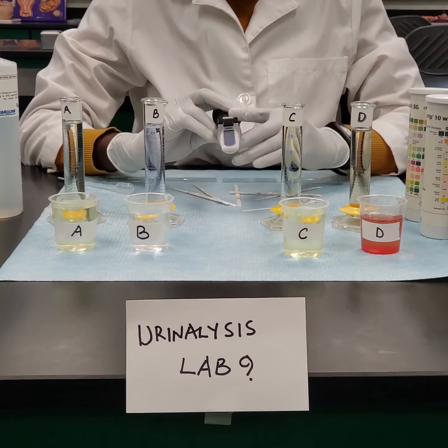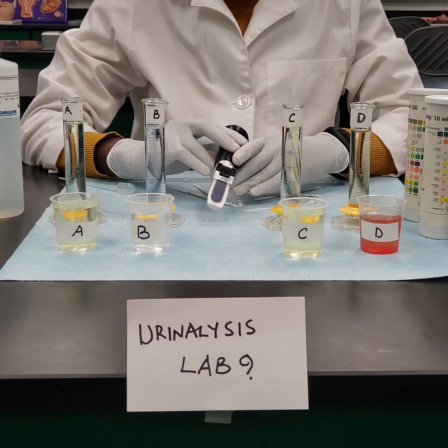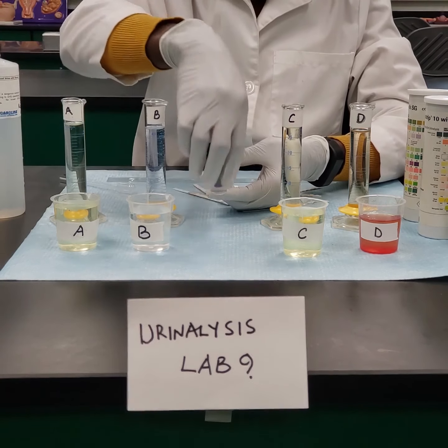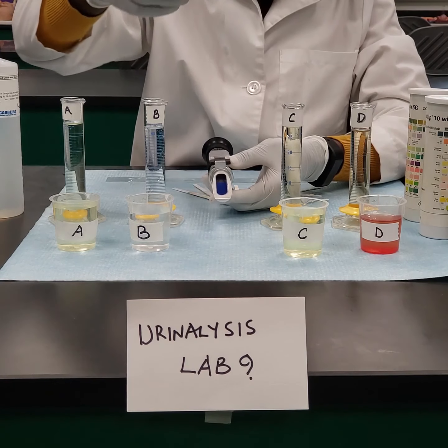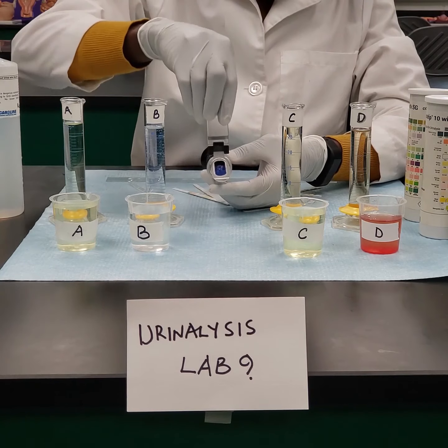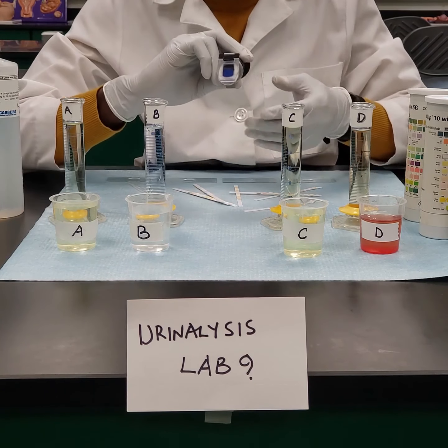We can also determine the specific gravity of the urine, and there's usually a normal range for that, 1.003 to 1.030. It's in your manual. What you use is what we call the refractometer, and it has a space in the front. You take a drop of your urine sample, one or two drops, and once you put that in, you cover this space, and then you can look through an aperture here, and it's going to give you the specific gravity.